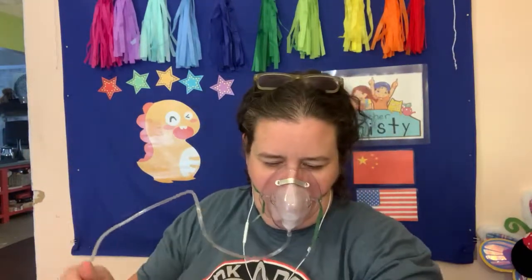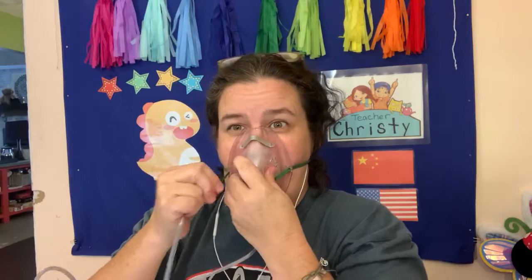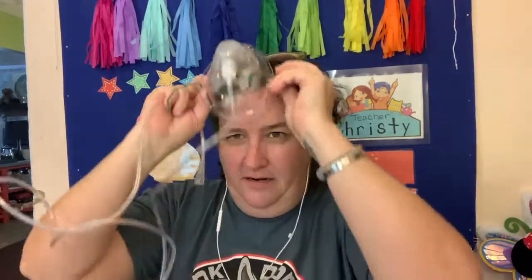During checkoffs, we may try to trick you by asking you to set a patient up on a simple mask at four liters. As long as you don't actually put it on at four liters, you'll pass. If you start setting it up and correct yourself, great. If you start and follow through with four liters, you'll be redoing the checkoff.